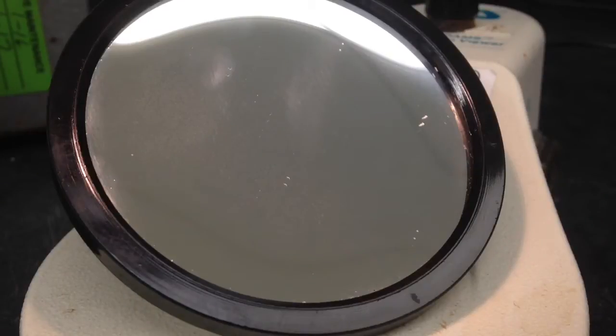In this video I just wanted to show you how to grade agglutination reactions in the tube method. Most facilities will usually have in their operating procedures what grading scale they want you to use.